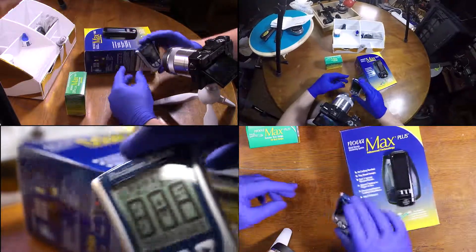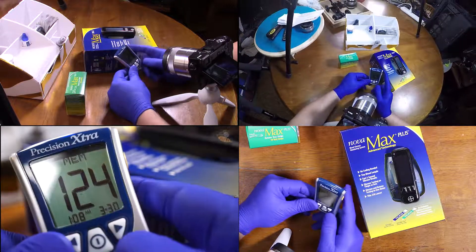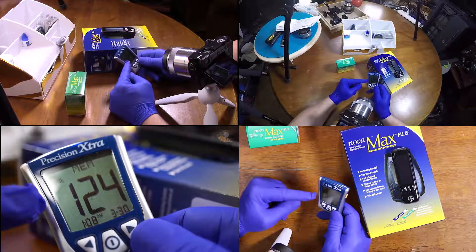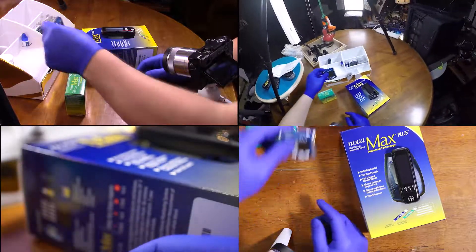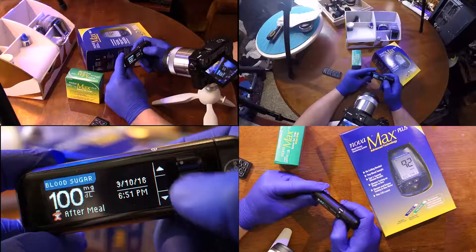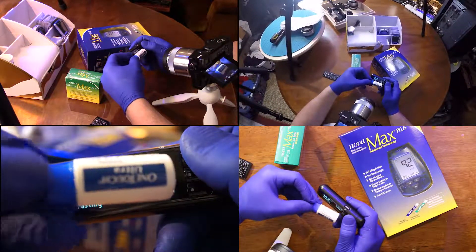This worked out really well. That was fasting at the end of the day. I don't remember when that was — that is my buddy Charlie. That is the actual control solution. Those are basically my numbers thus far. That was actually the control solution on this particular meter.